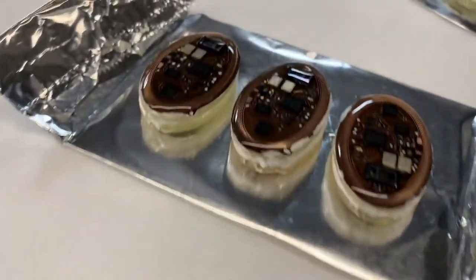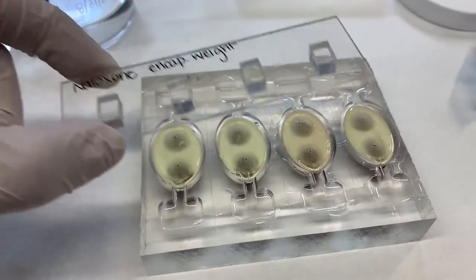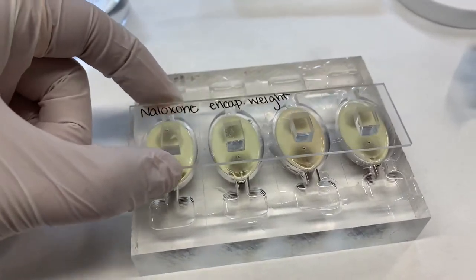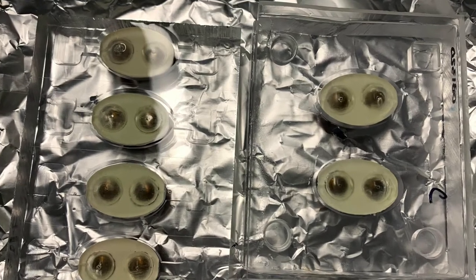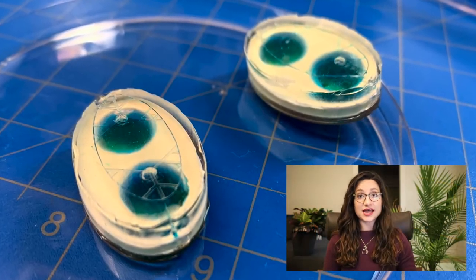When I make the drug delivery devices, I have to prepare them first, then put them into their mold and add the sticky polymer. Then I add a covering, which stays on while they cure, and the finished products look like this. Once they're removed and filled, you can see the part where the medicine goes inside. It's blue.